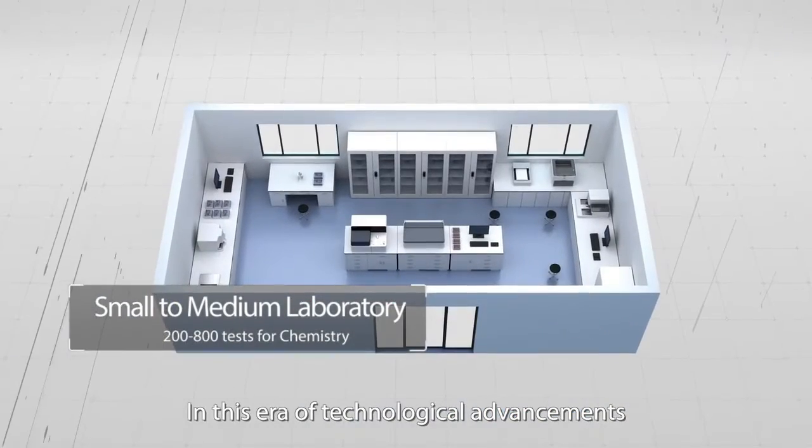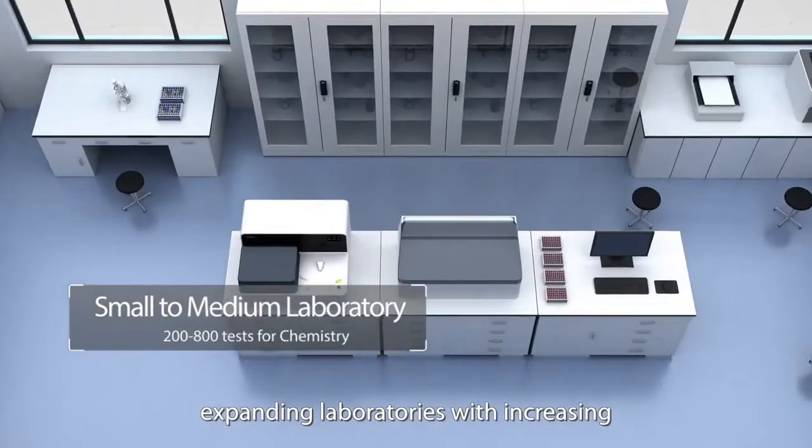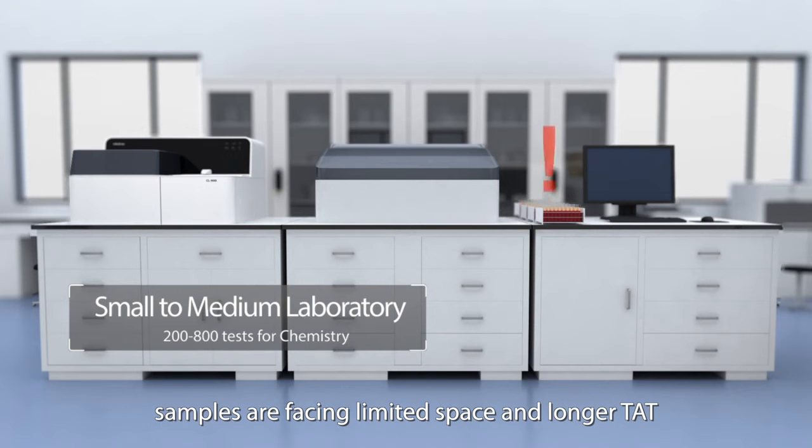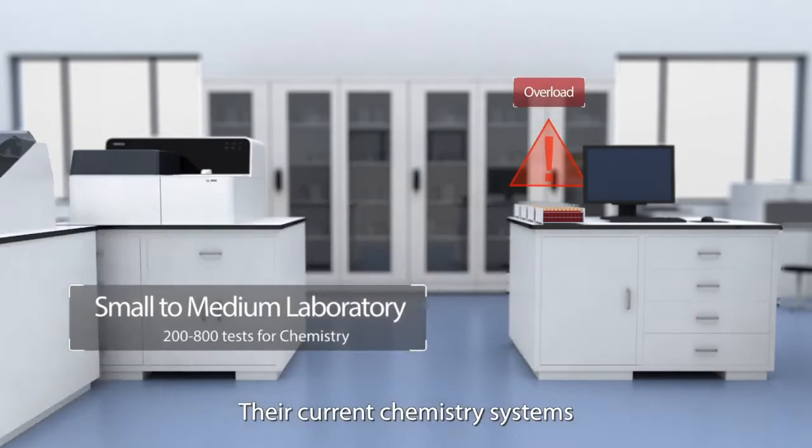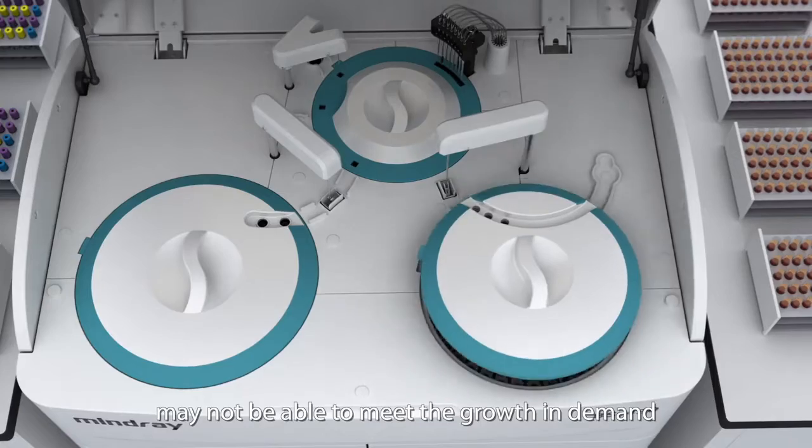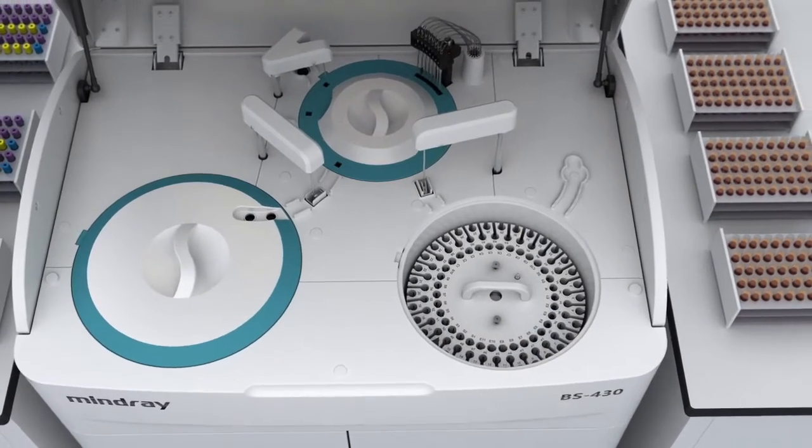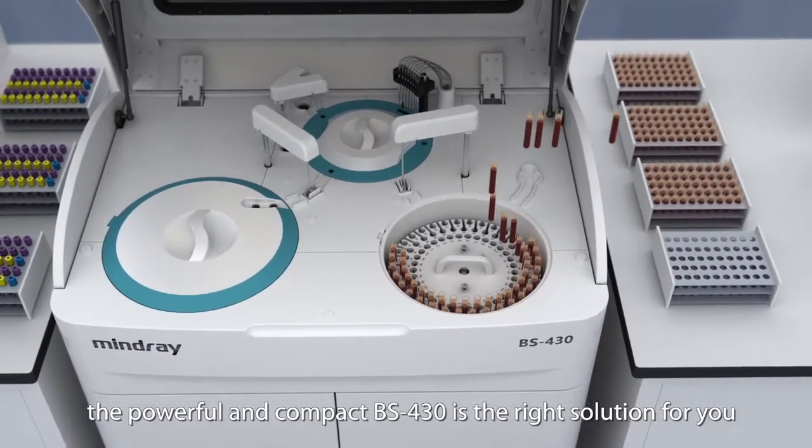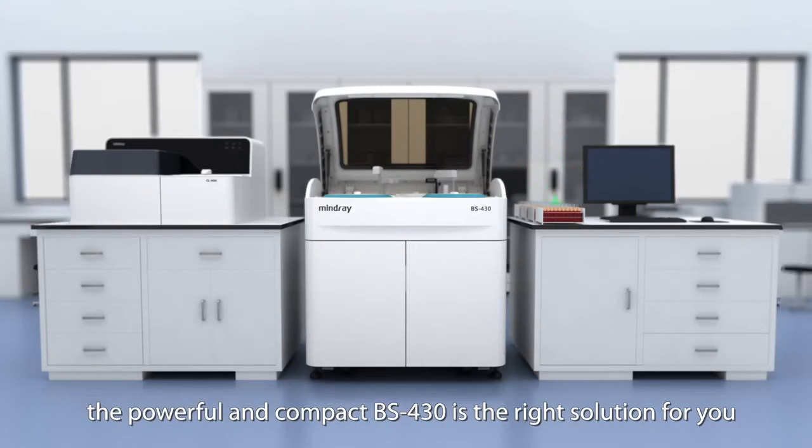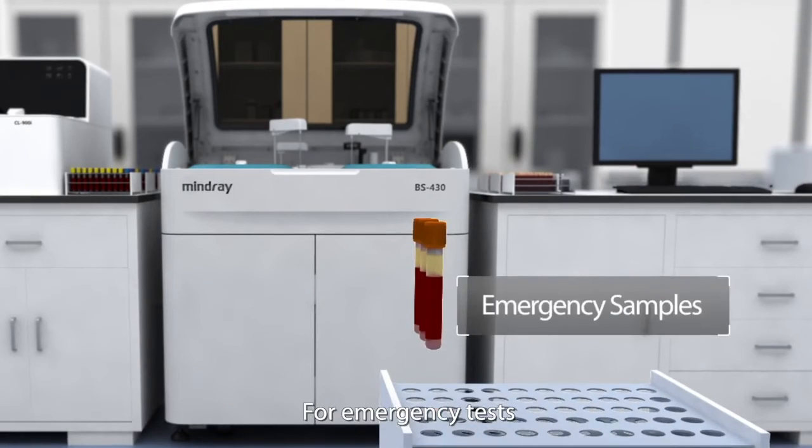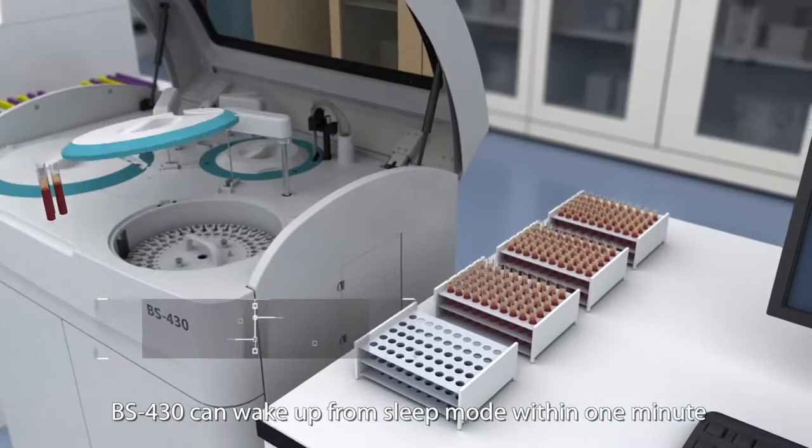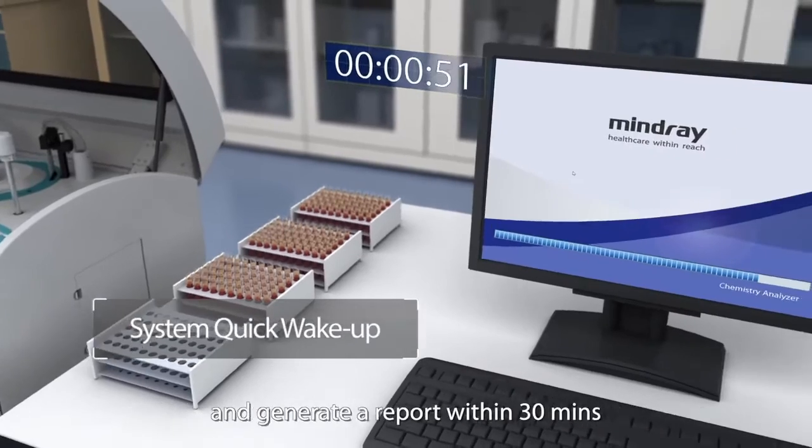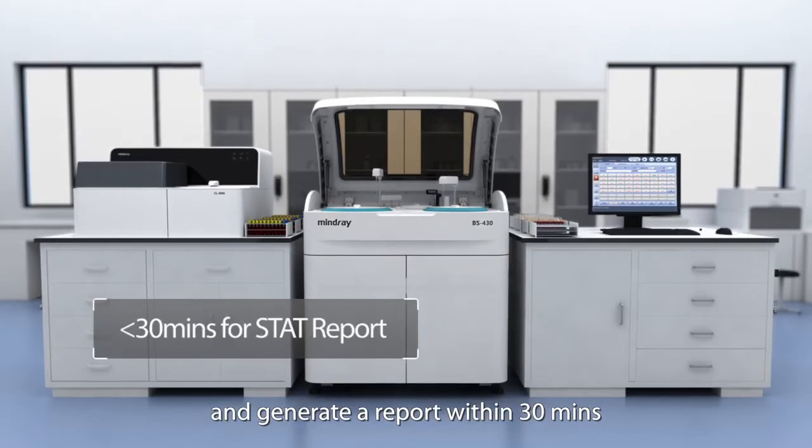In this era of technological advancement, expanding laboratories with increasing samples are facing limited space and longer TAT. Their current chemistry systems may not be able to meet the growth in demand. In this situation, the powerful and compact BS430 is the right solution for you. For emergency tests, BS430 can wake up from sleep mode within one minute and generate a report within 30 minutes.